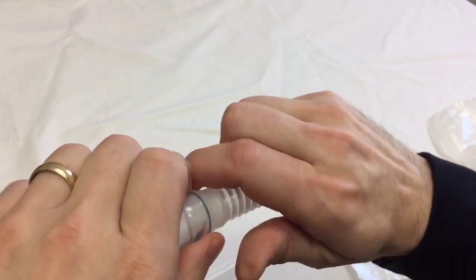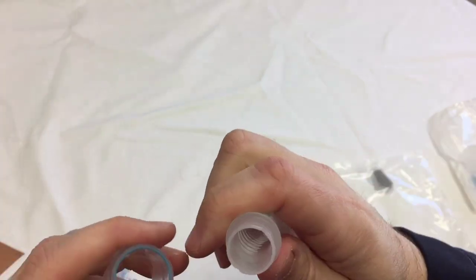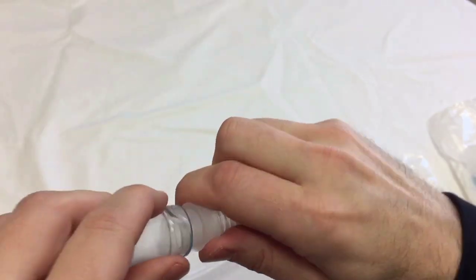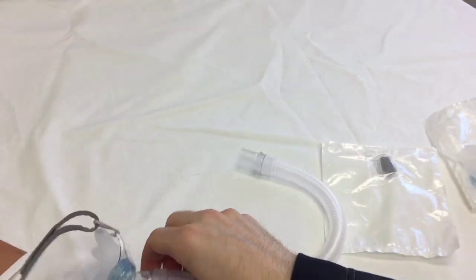This little swivel adapter at the end of the short tube will connect to any machine at all, any tubing, by any manufacturer. It will work with everything.